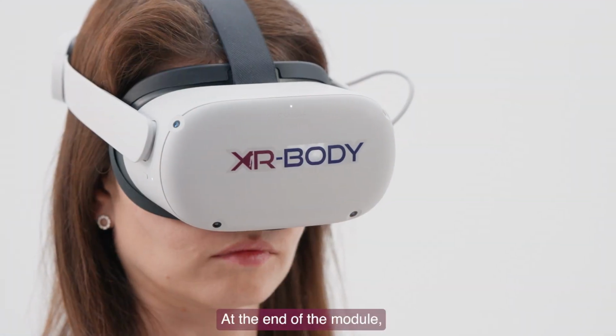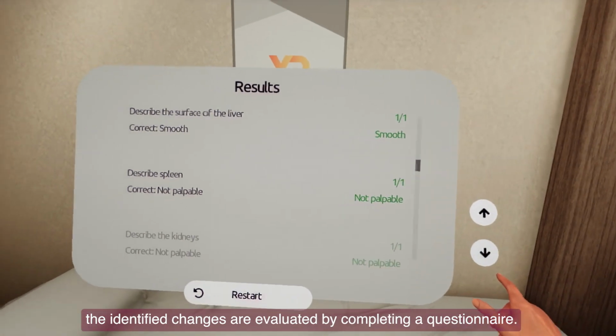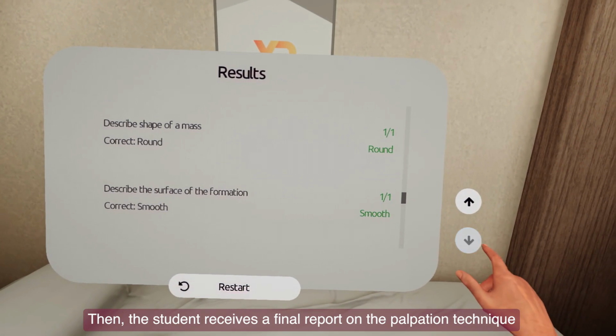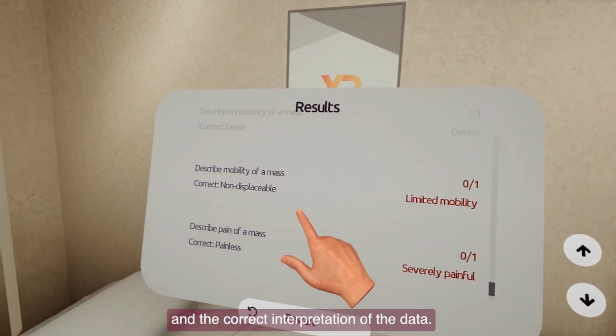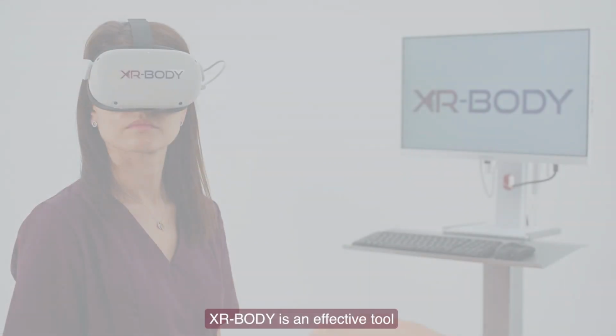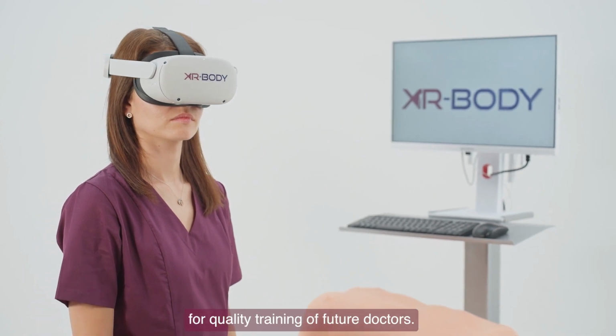At the end of the module, the identified changes are evaluated by completing a questionnaire. Then, the student receives a final report on the palpation technique and the correct interpretation of the data. XR Body is an effective tool for quality training of future doctors.